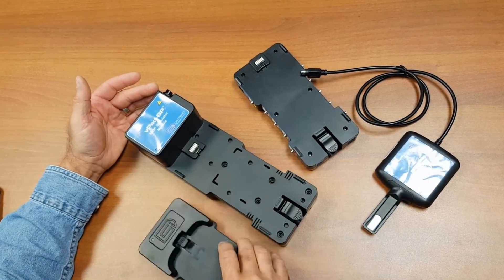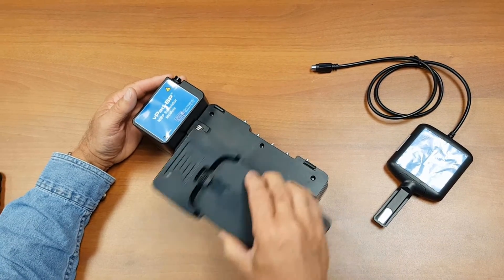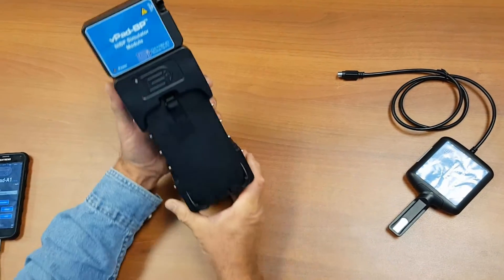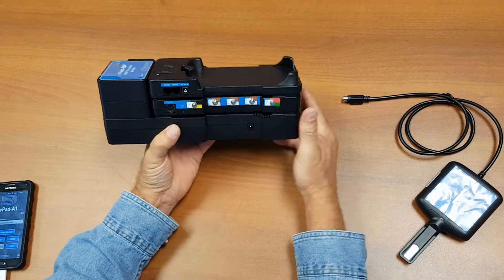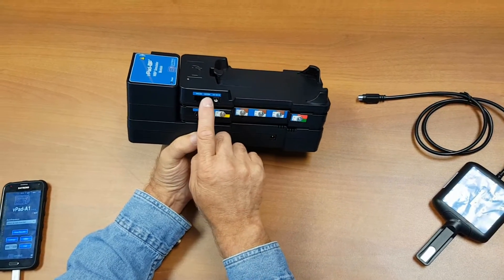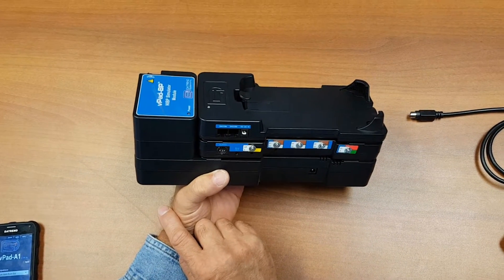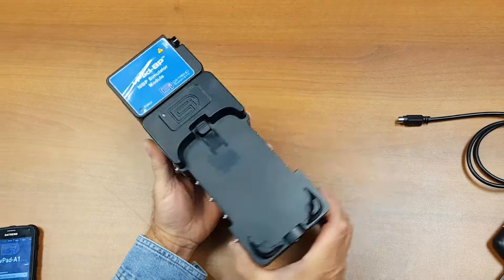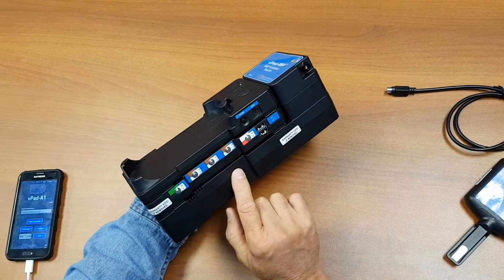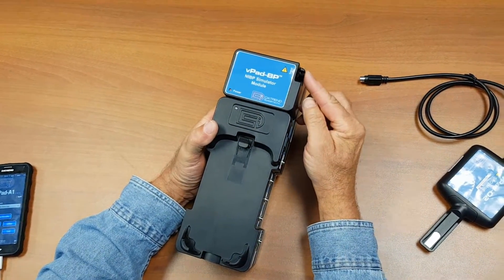The unit is a modular system, so the modules snap together to give you the complete unit with access to all the different connections. You can also expand the unit via the Dacom bus, which allows you to connect to the VPAD ES safety analyzer or potentially other devices in the VPAD line. There is also an IBP and SpO2 power connection, and the NIBP hose connects up to the input here.